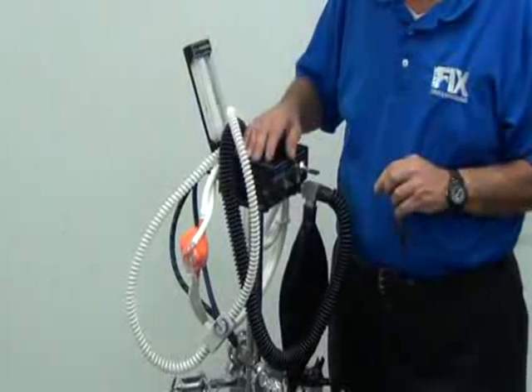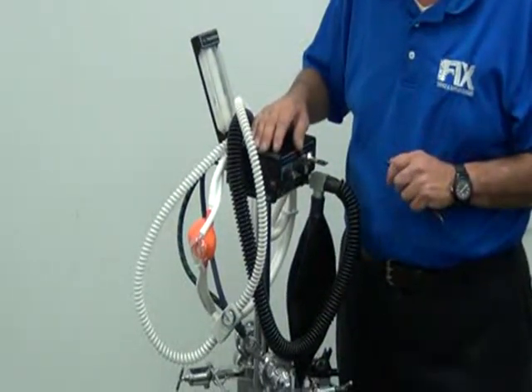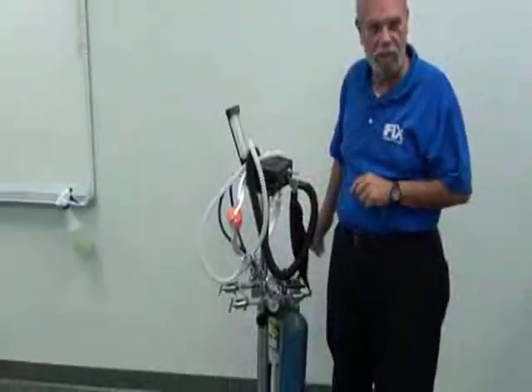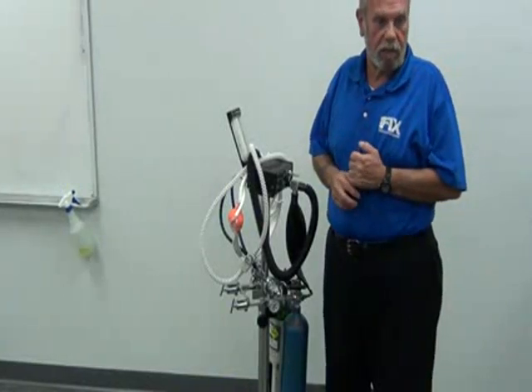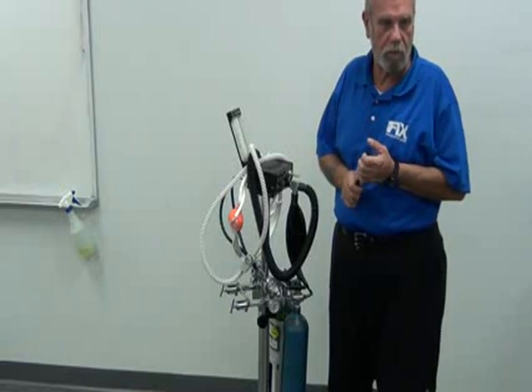DCI or Belmed. Ordered through parts at dentalfix.com. Be happy to get the parts for you. And these parts do dry rot and they do require replacement. You'll go in offices and see pieces of duct tape on the breathing bags. It doesn't make it work any worse. It doesn't make it work any better. It makes it look like hay. You know, and I'm sure the doctor wants to keep a nice, clean, sterile looking environment in his office.